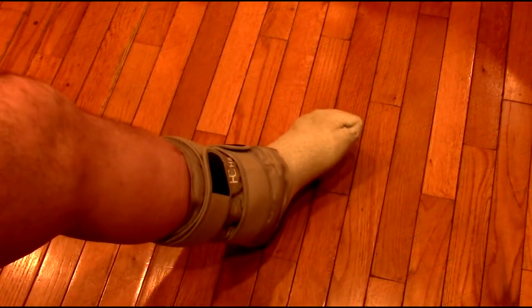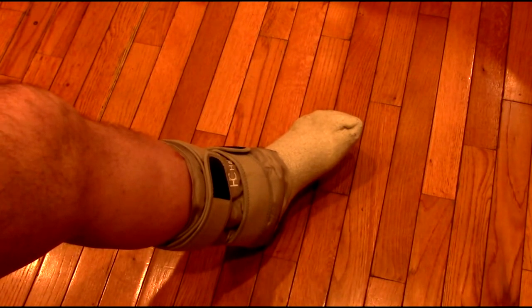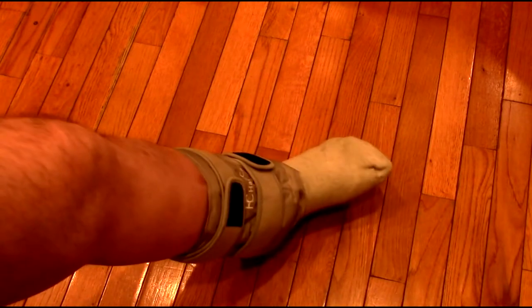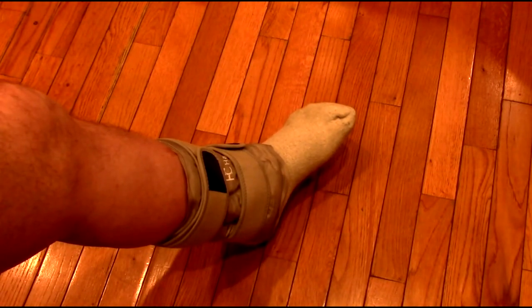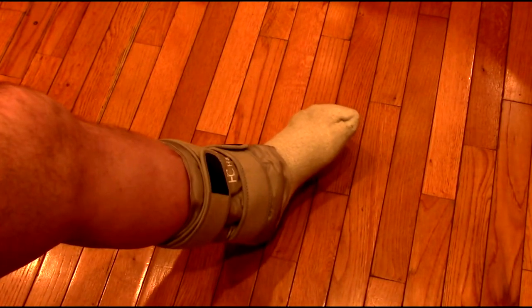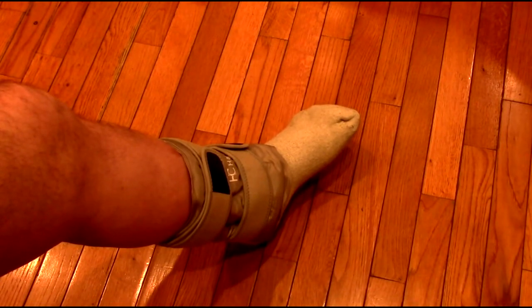I moved it down because I do get some edema on my left foot. Now I have it chilled and on the bottom of my foot — you can see it's held in place quite nicely. I just adjusted the straps to be a little tighter, but it works perfectly on the bottom of your foot as well.